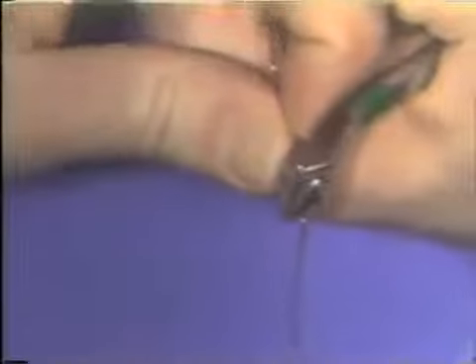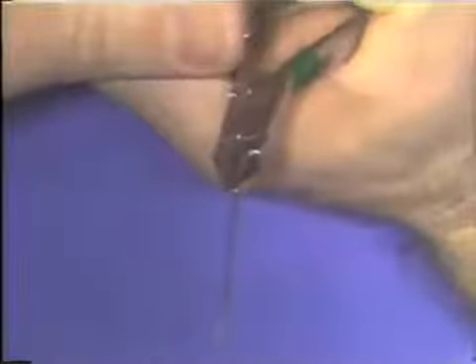The wire is simply bent down until it approaches parallelism with the part that is already flat on the table. Now you try the wire back down on the table, and we see that it has in fact become worse.